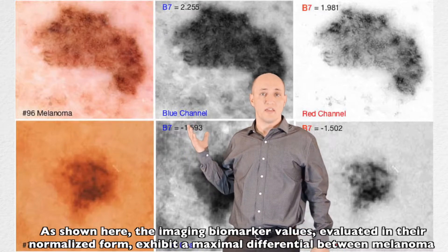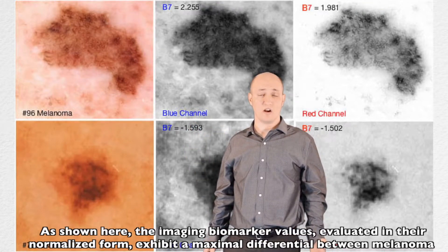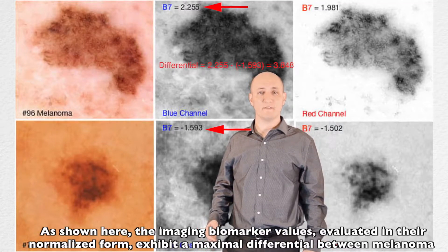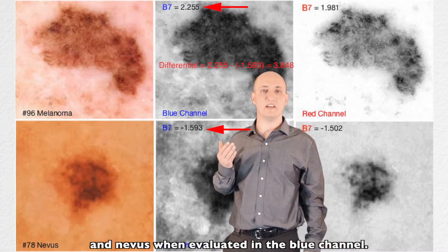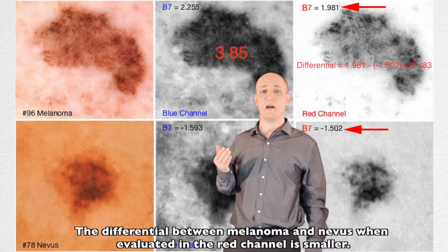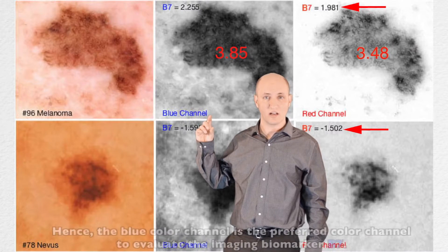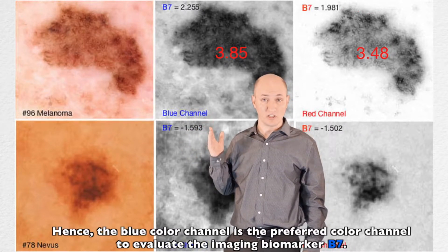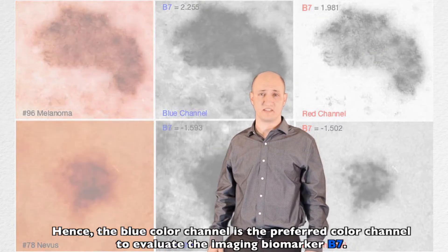As shown here, the imaging biomarker values, evaluated in their normalized form, exhibit a maximal differential between melanoma and nevus when evaluated in the blue channel. The differential between melanoma and nevus when evaluated in the red channel is smaller. Hence, the blue color channel is the preferred color channel to evaluate imaging biomarker B7.